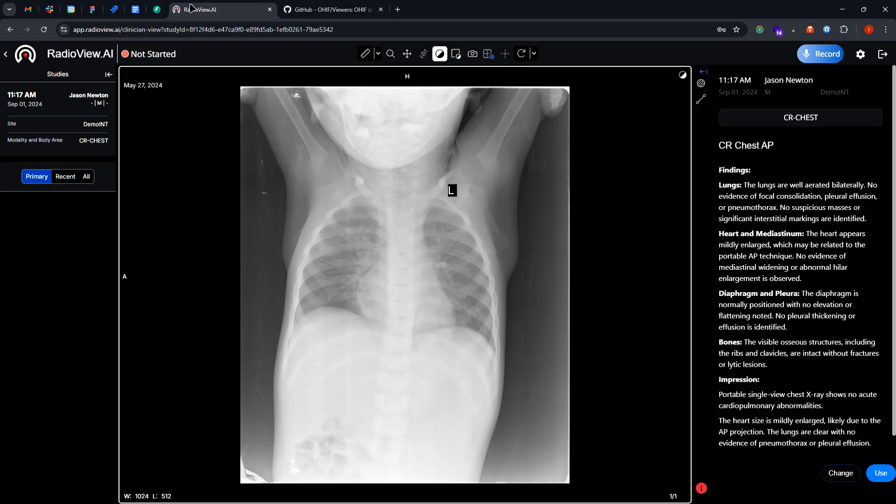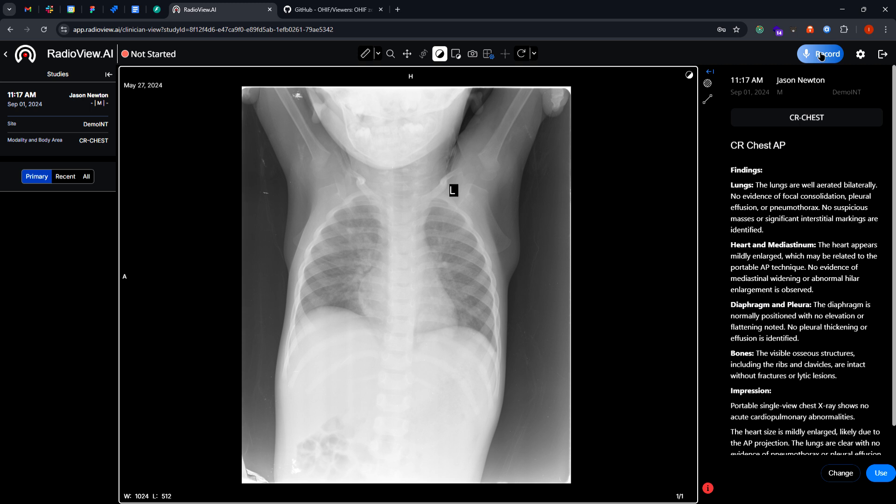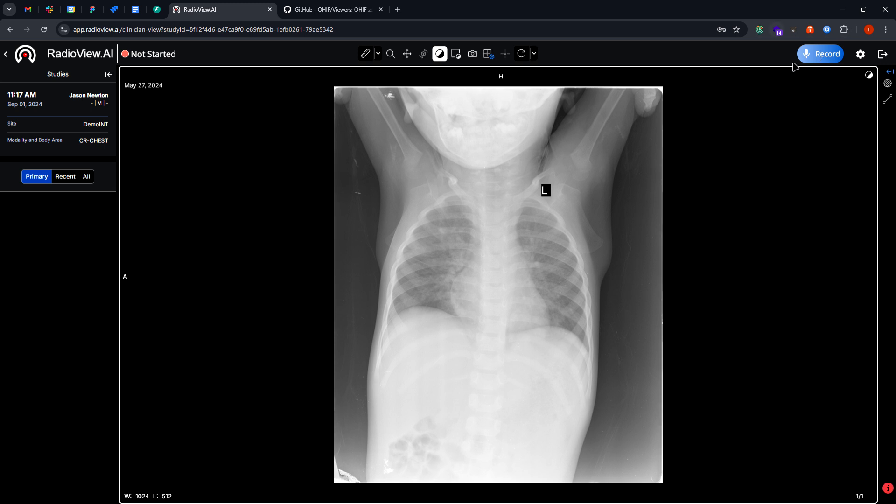From there we can see that we have a button here. So this is our host application. Basically there are two applications inside. The first application we are using, the OHIF as an iframe, so that's in the documentation of OHIF.